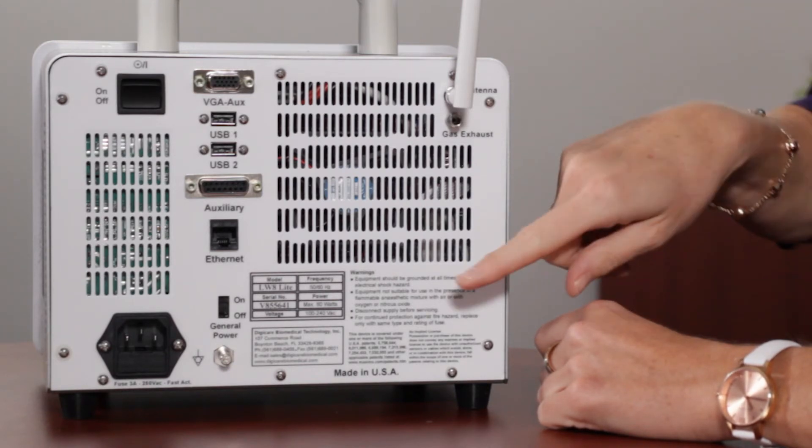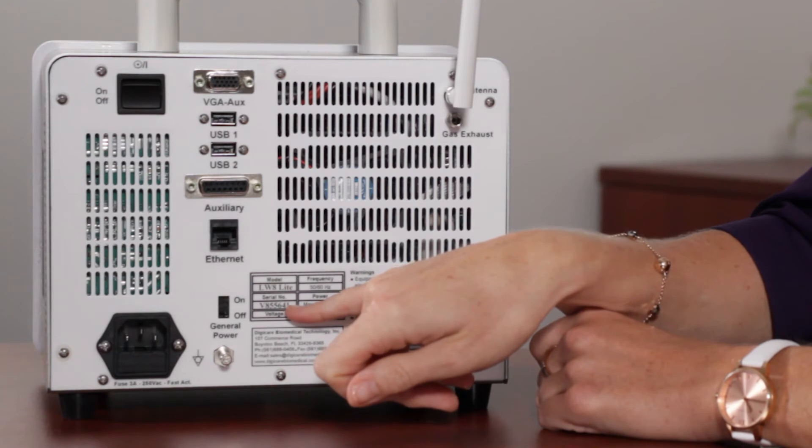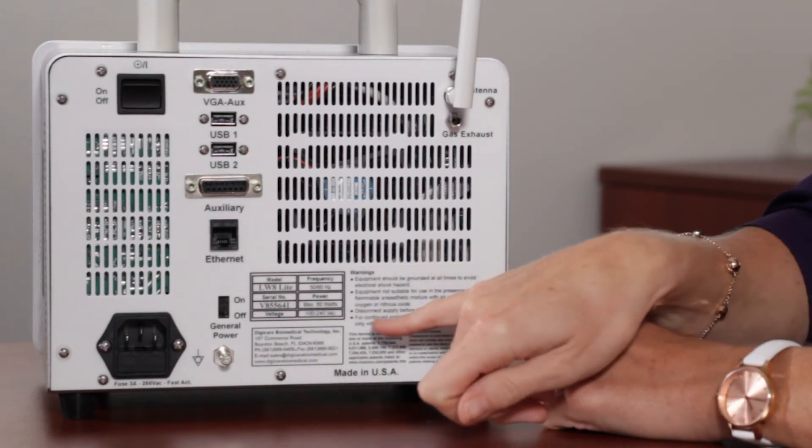Anytime you call into tech support, you want to make sure that you have your serial number, which is located on the back of the monitor.